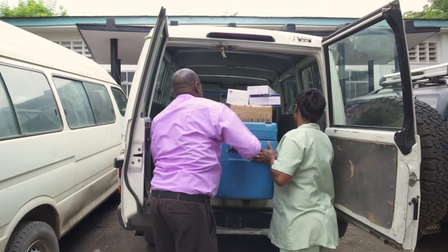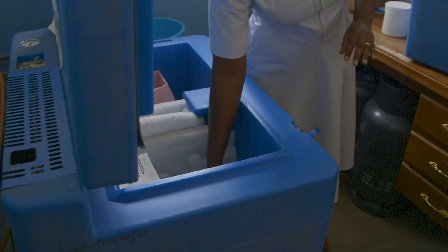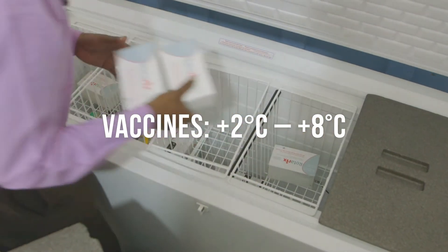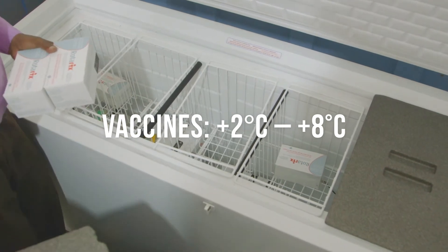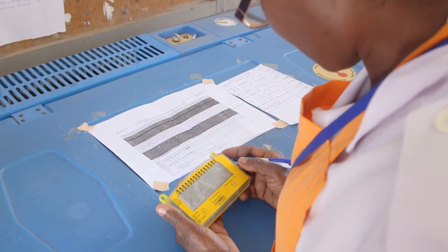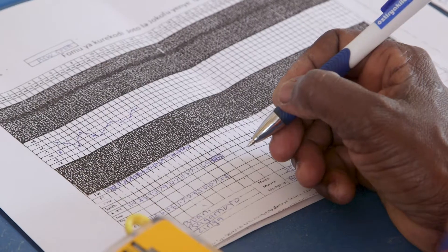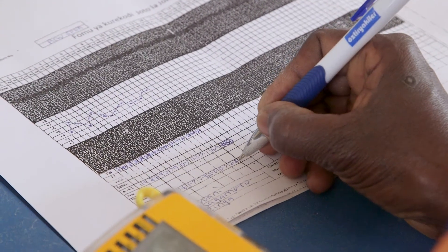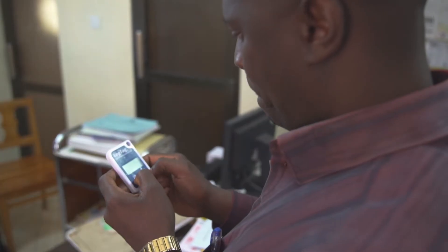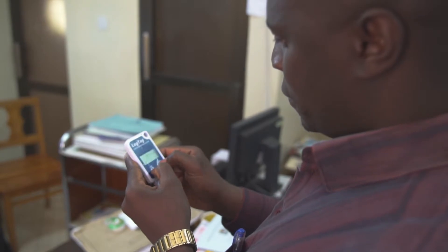Any time a vaccine is being transported or stored at your health facility, it must be kept at the right temperature, between 2 degrees and 8 degrees Celsius. The only way to know that a vaccine has been kept at the right temperature is to monitor and record refrigerator temperatures twice every day. In this video, we will show you how to use the log tag so you can do this.